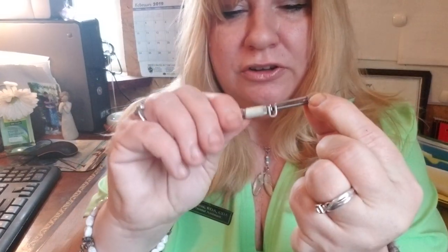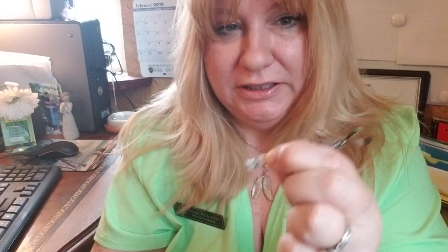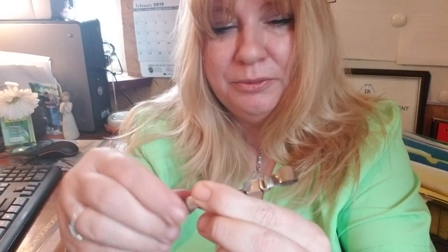Once you have that, you're going to hold it so it doesn't come out and tighten it by the outer nuts — sometimes you have to hold this nut to tighten it. That's if you want to keep them in your drawers ready to go in case there's an emergency or a walk-in. It's good to have things prepared ahead of time.